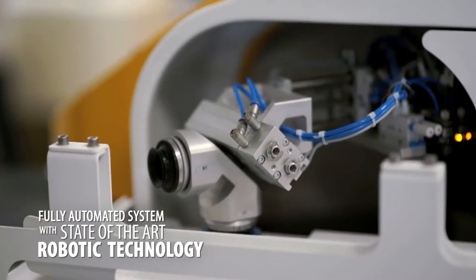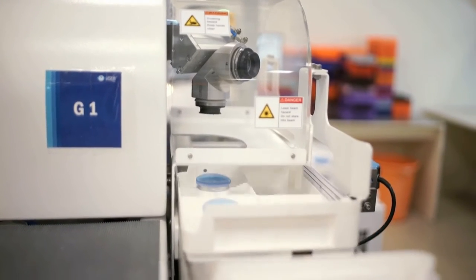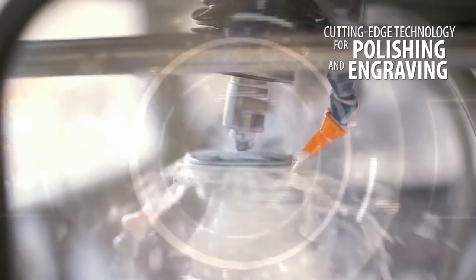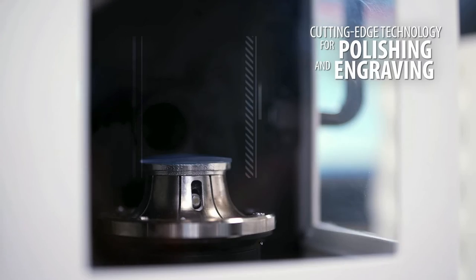Using state-of-the-art robotic technology supervised by expert professionals. After power generation, lenses are polished with automated machinery and engraved with laser.